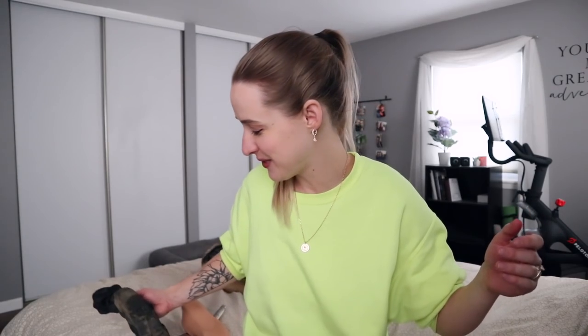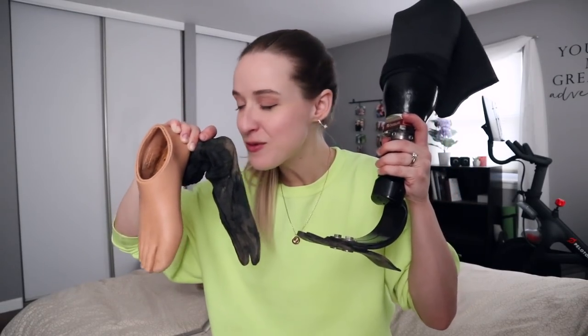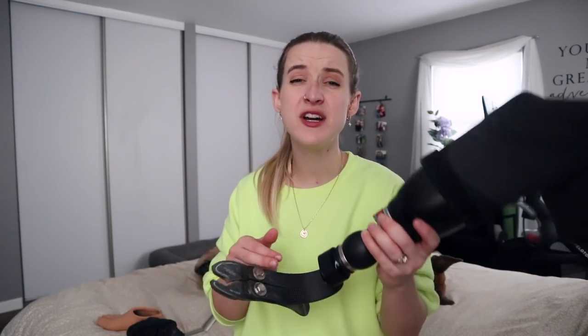I'm sure someone told me to do this at one point and I was like, cool, I'll get to it — and then I never got to it, because this is so crusted in dirt that it's holding the shape of the foot when there's nothing in there. I am a little grossed out by myself. So here we have really the three pieces that make up a prosthetic foot: the carbon fiber foot itself that allows me to walk, the Kevlar sleeve that protects it, and the foot shell in size 23R. Once I had successfully determined that there was no weird hissing or clicking sound coming from my foot, I tried it on just like this — okay, it really is a suction issue, it's not forming properly, it's all here.